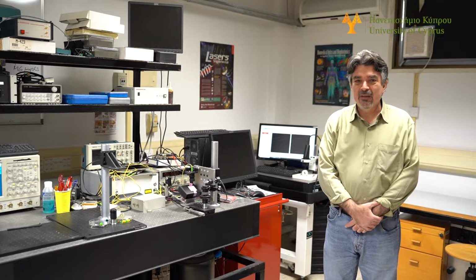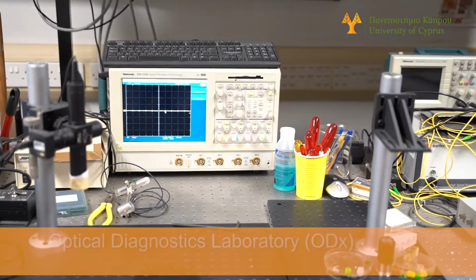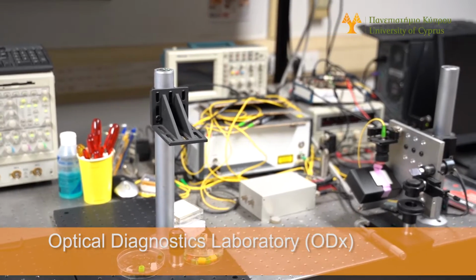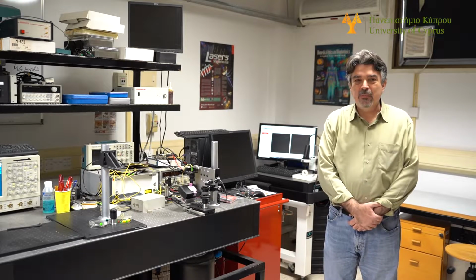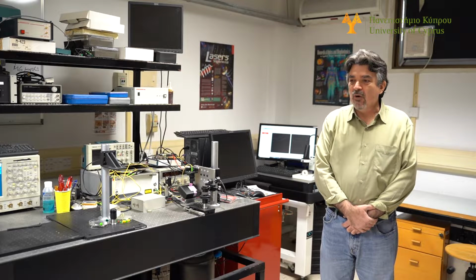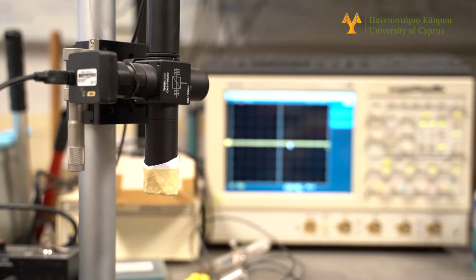In this lab, we have the equipment and we develop technologies for optical diagnostics, which means that we use laser light to develop methodologies for the diagnosis of various diseases. Our main research areas consist of optical coherence tomography and Raman spectroscopy.